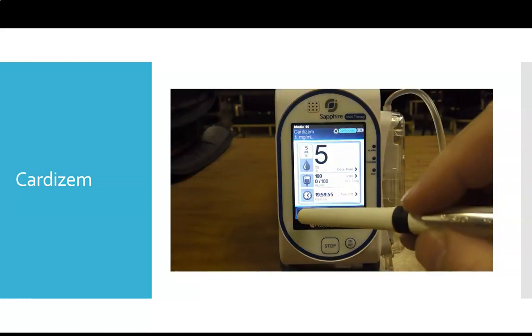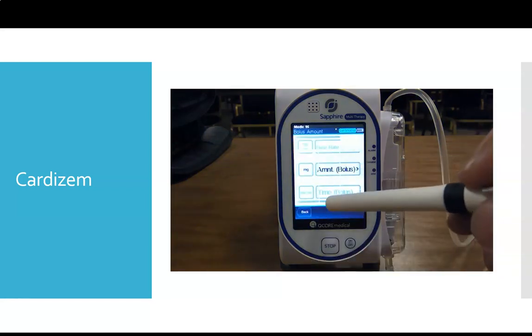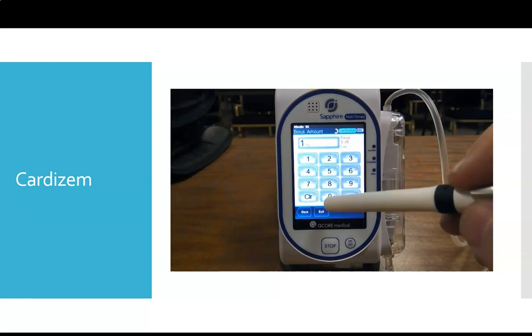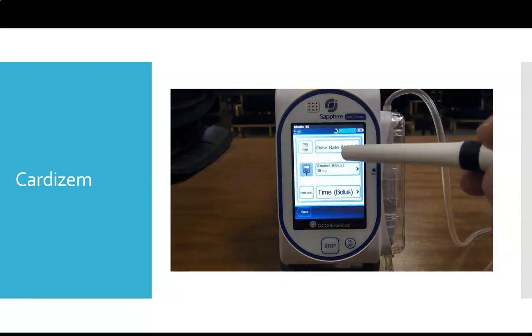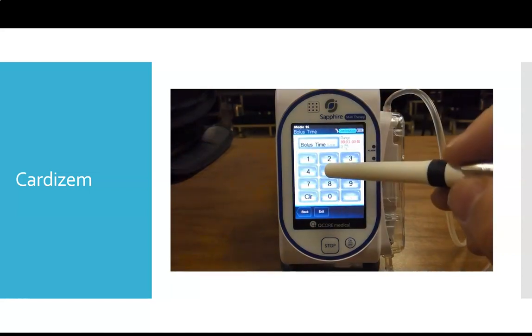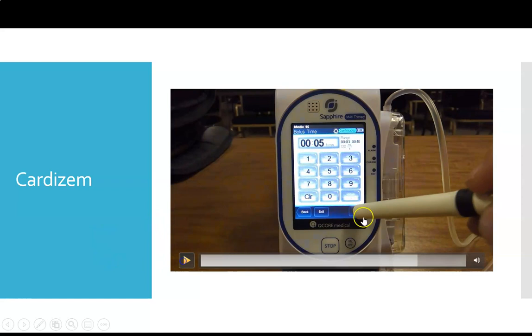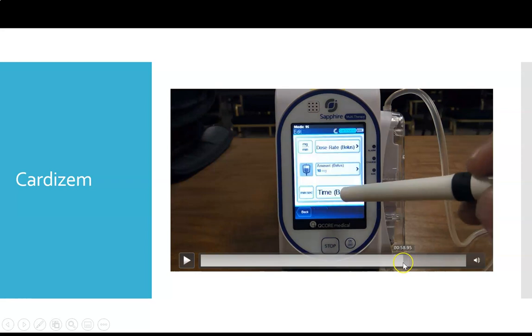And now once our pump is set up, we're going to do the bolus. We're going to press this bolus button, enter in how much Cardizem we want to give. And we say we're going to do 10 milligrams. And then we want to figure out how much time we want to give that over. And let's just back up here real quick. It can be very tempting to want to click dose rate.